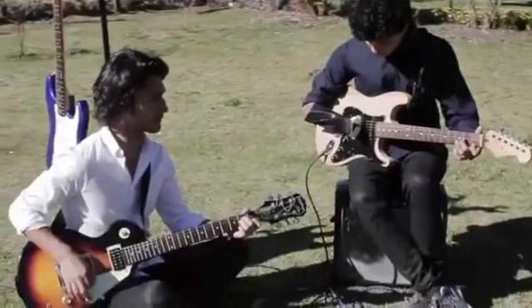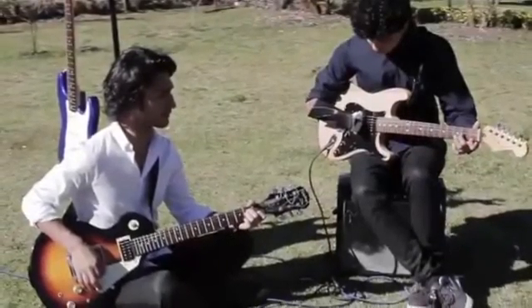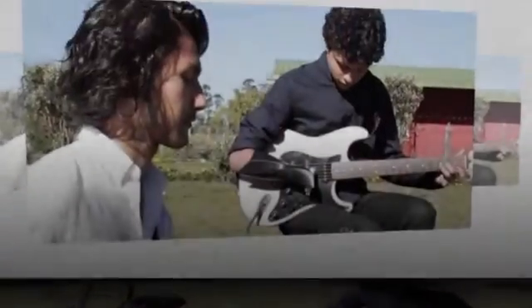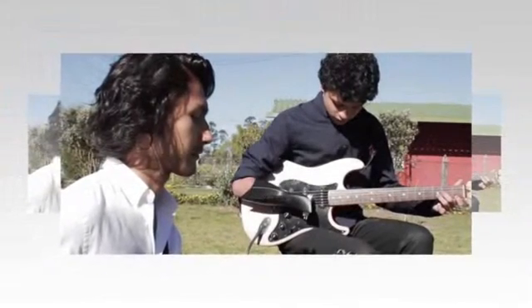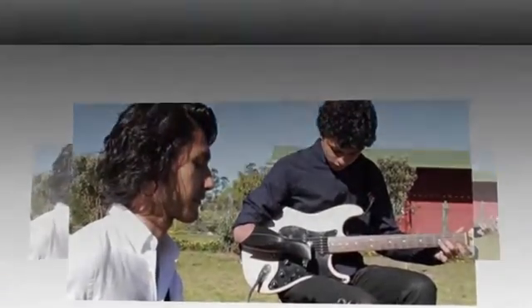Because it didn't have to look much like a hand, they were able to experiment with the shape, finally settling on a shield to place over his arm as well as a pair of pinchers to hold the pick. The team also emblazoned the arm with the Linkin Park logo for Corretor.